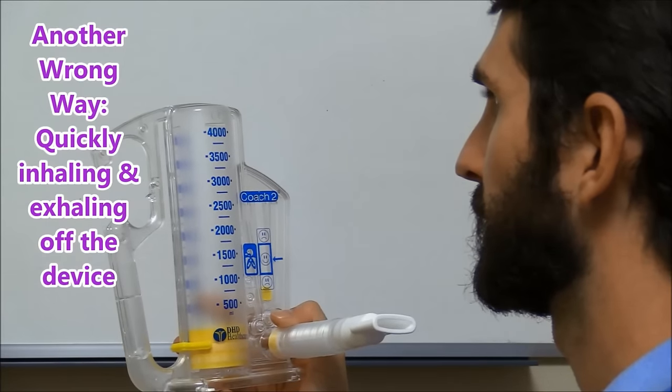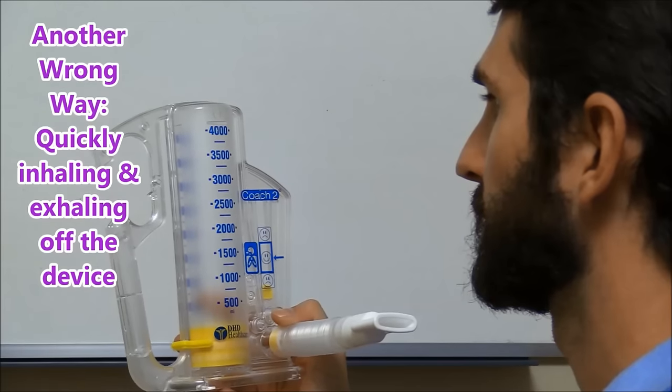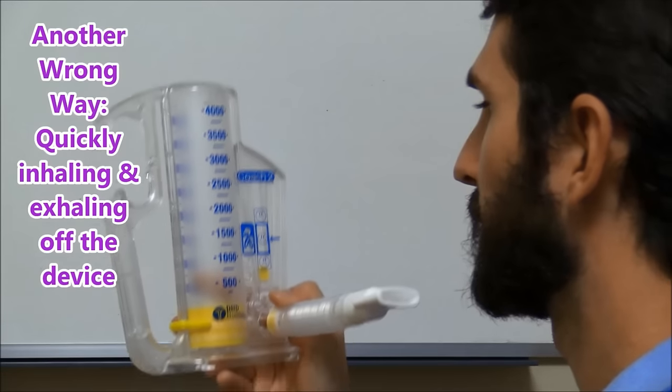Another wrong way patients may try to use an incentive spirometer is by quickly inhaling and exhaling off the device like this.